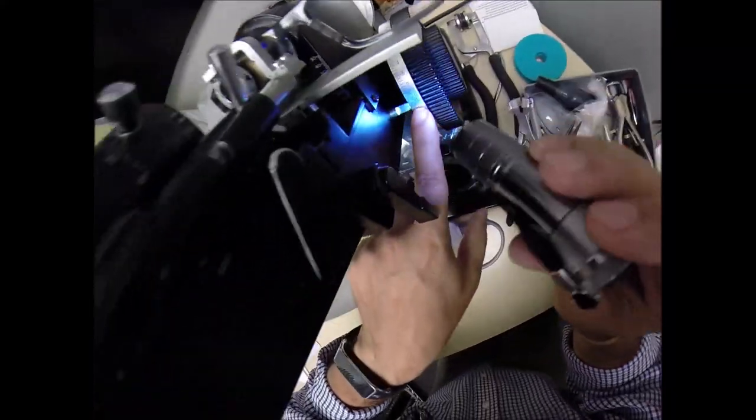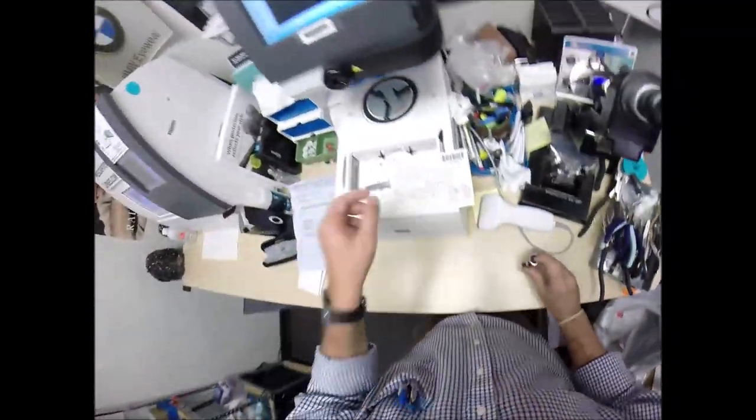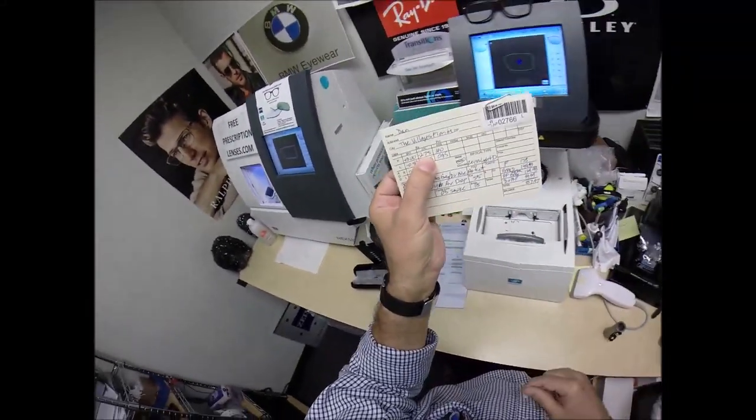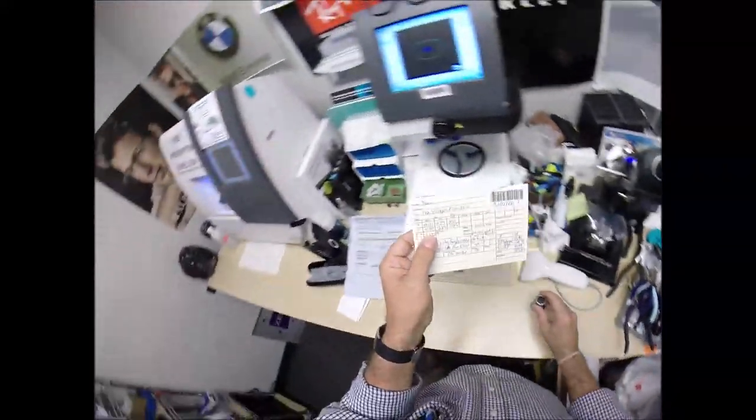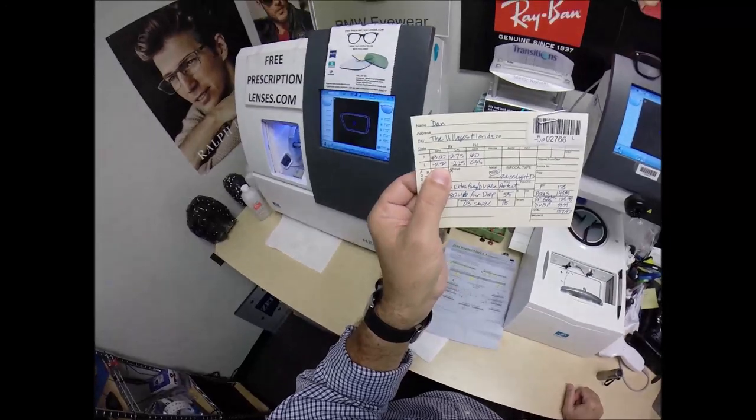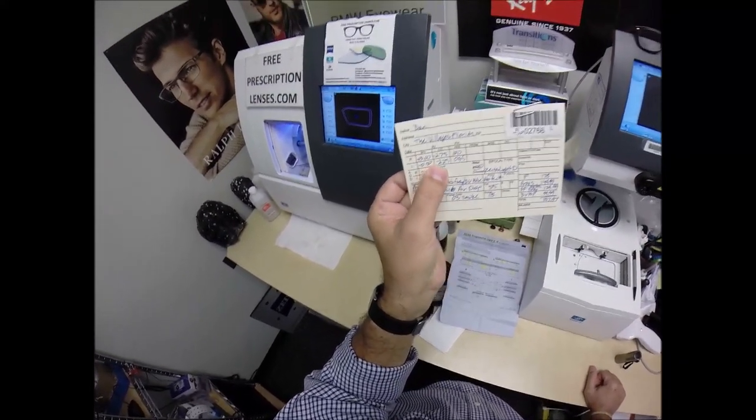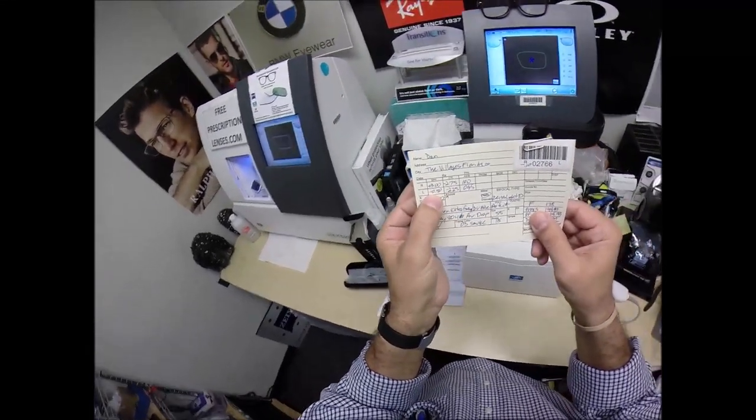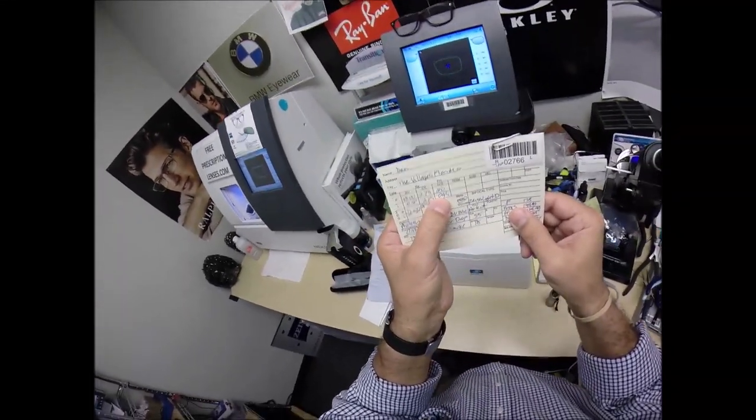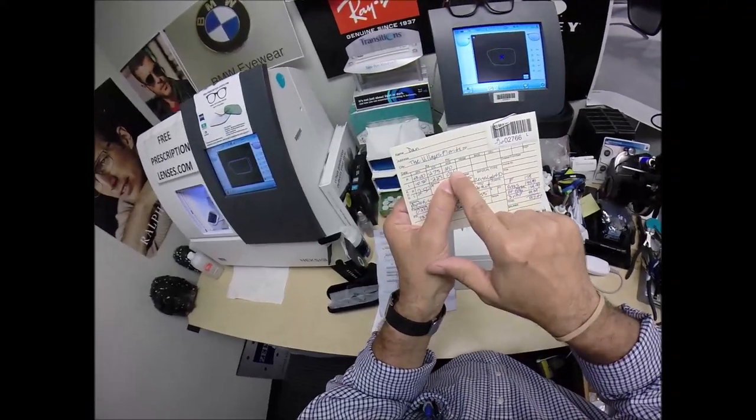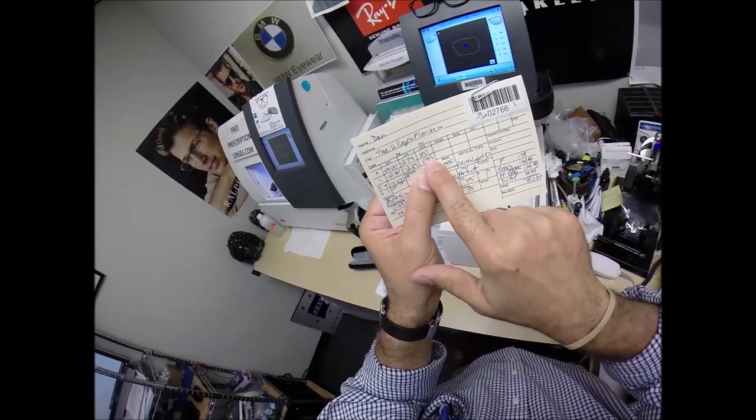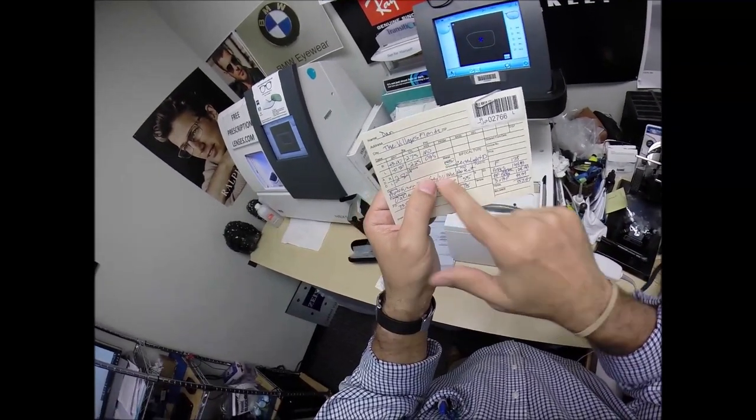Let's check the second power. And we're at plus a quarter, one tick mark away from zero. That's because if you had three dollars, and you let someone borrow two dollars and 75 cents, you would have a quarter left, a quarter in the black. Now, your right eye, you have two steps of nearsighted correction, but you have two and a quarter diopters of astigmatism correction. Now, these first two numbers are real values to be concerned with. This last number could be anywhere from zero to 180. Now, it's 100 for the right eye, 95 for the left. So you only have five degrees of separation from your prescription and Kevin Bacon's.